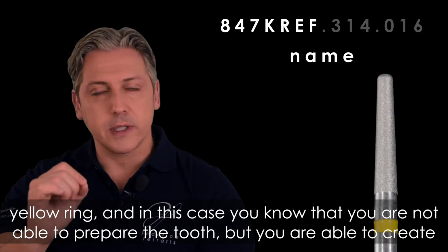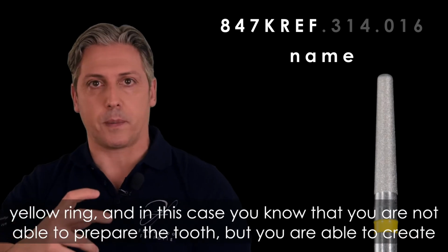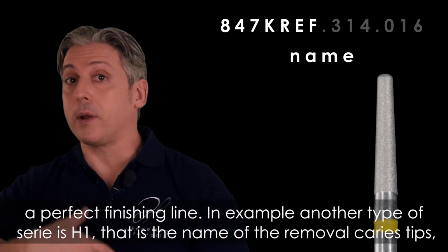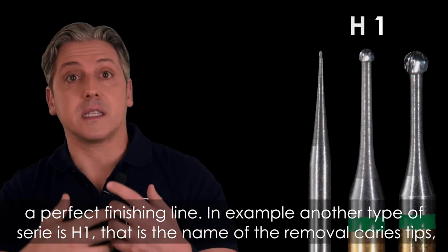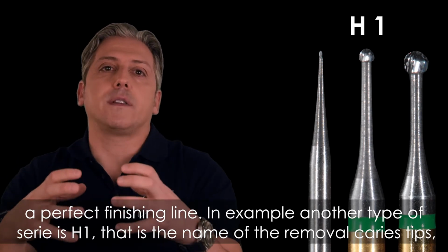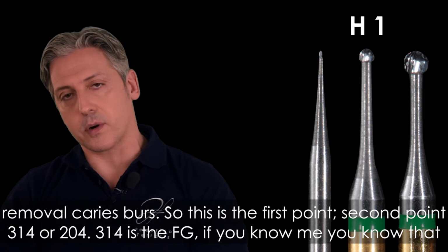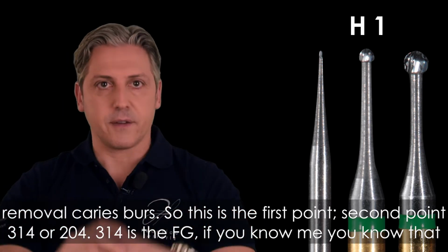In this case, you know that you are not able to prepare the tooth, but you are able to create a perfect finishing line. For example, another type of series is H1, that is the name of the caries removal burrs, okay? So this is the first point.